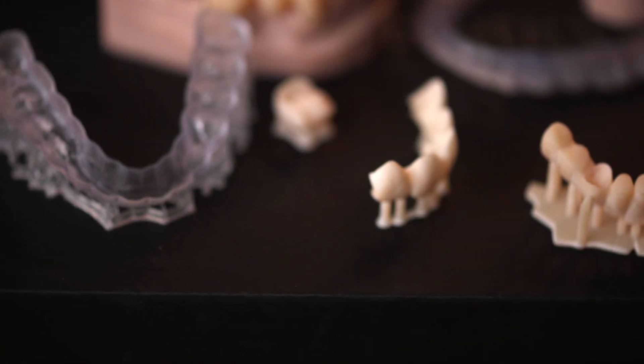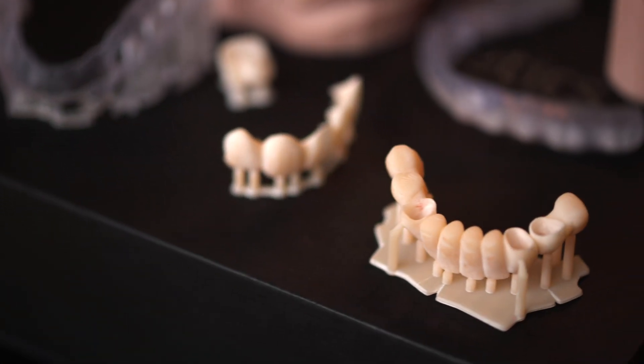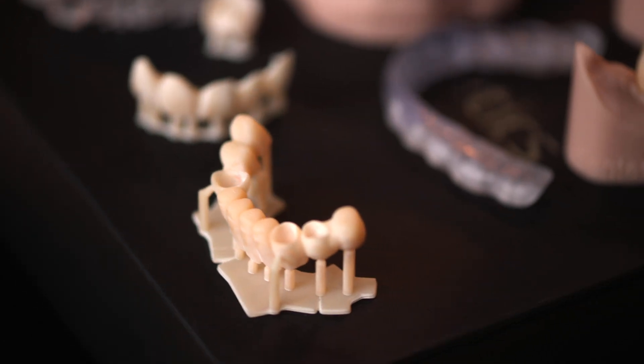It is also important to consider the material properties required for the dental appliance. For instance, color, biocompatibility, durability, flexibility, and longevity may vary depending on the appliance's intended use. Choosing the right resin is essential.